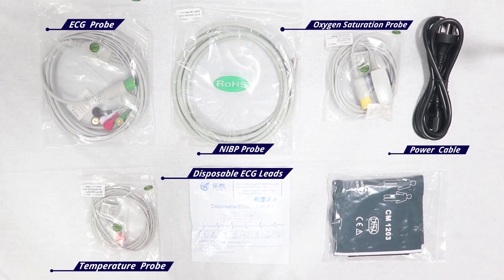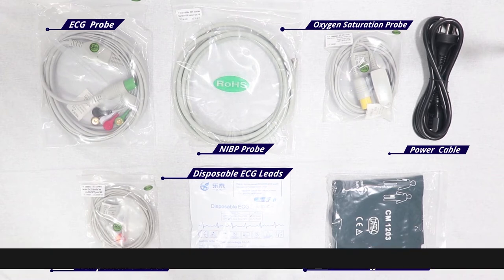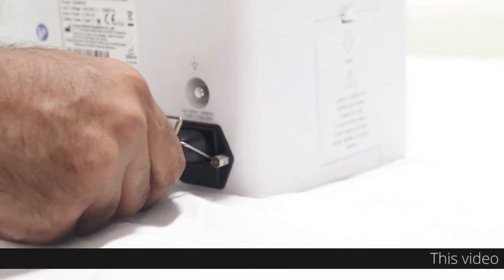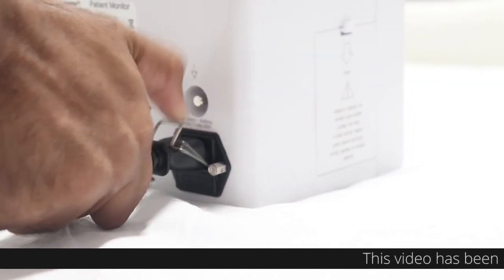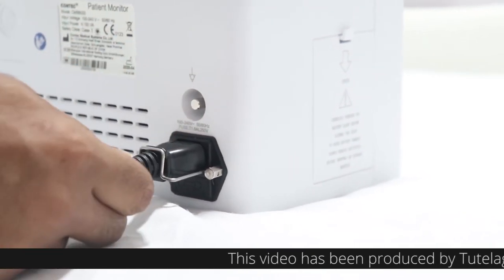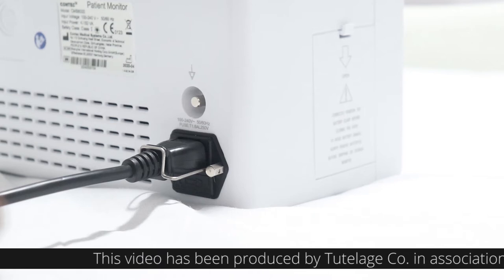Installation: While installing the monitor, plug the power cable into its socket, securing it in place. Make sure the AC power supply complies to 100-240V and 50-60Hz.